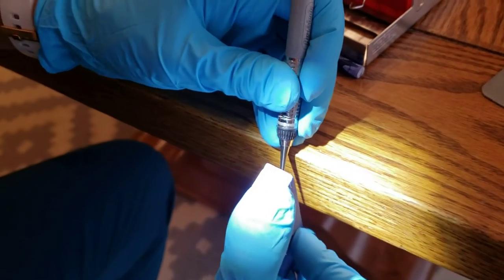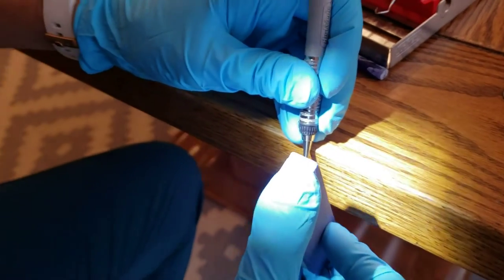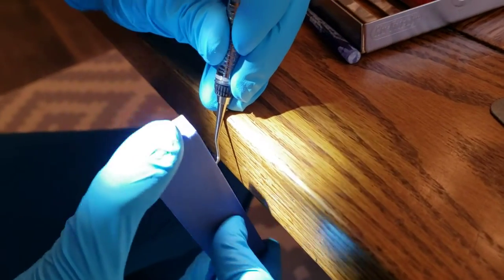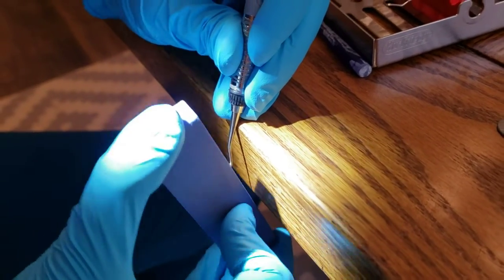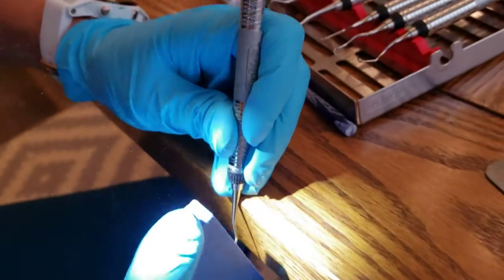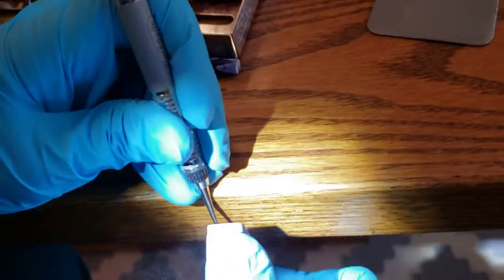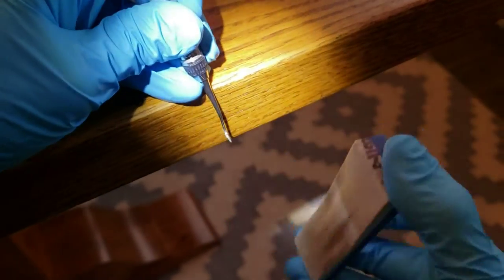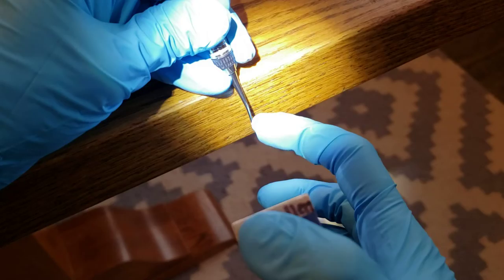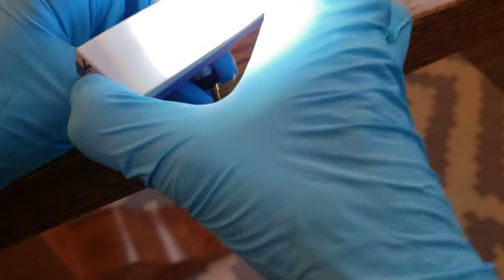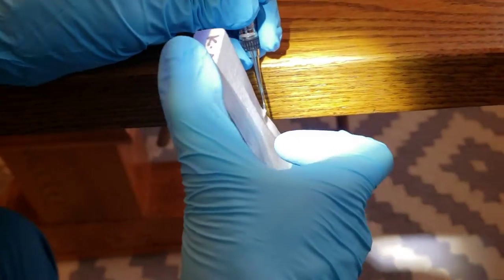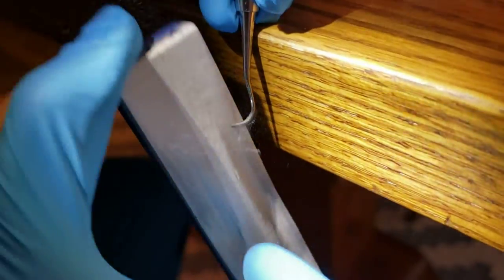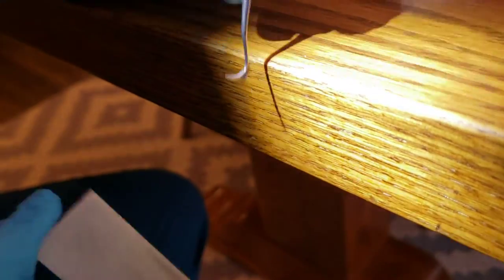And I'm going to go three minutes past twelve o'clock if we had a clock that was at the top here of our instrument. And you get a pretty good amount of pressure. You usually see a little bit of smoke, and you see that the shavings kind of coming across that blade. Now because this is a pointed tip, we're just going to come right off the tip. We're not going to come around. Okay, right like that.